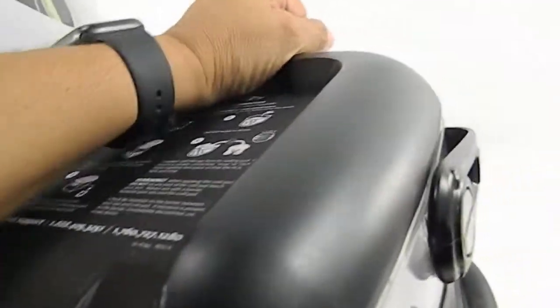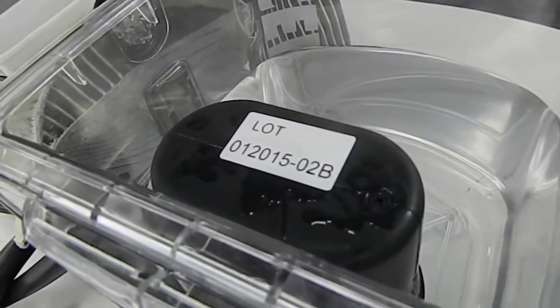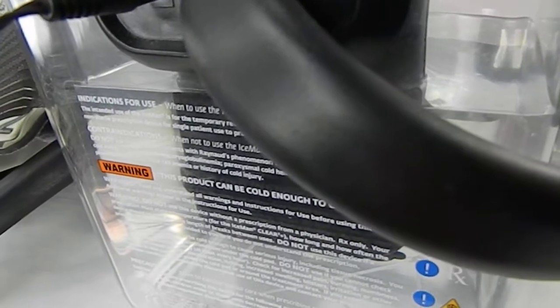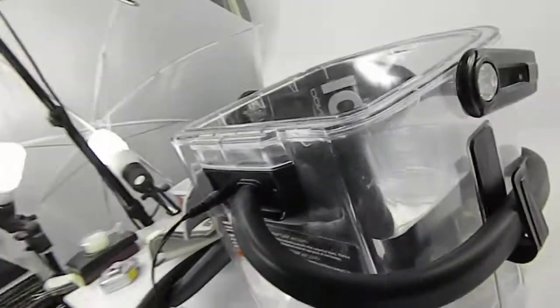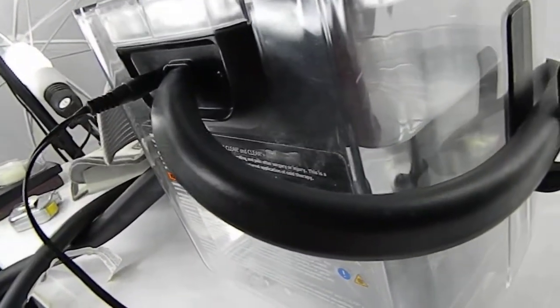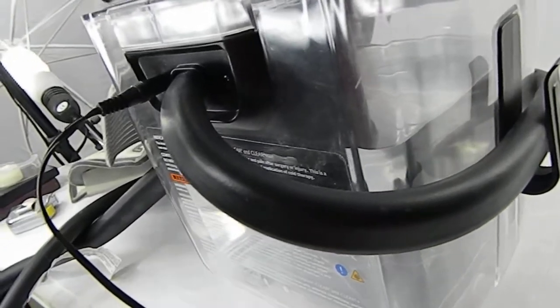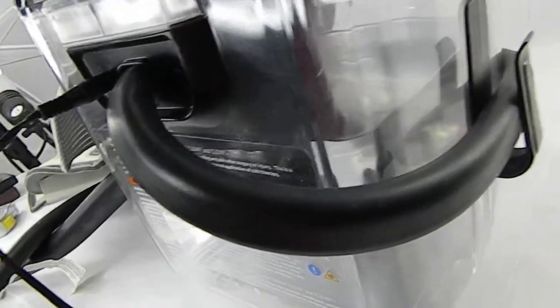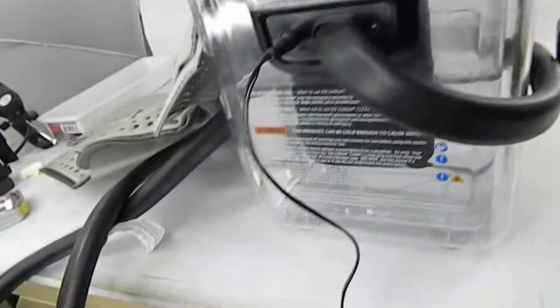I'll take off the lid. I put water in there, but it's just not pumping. So I don't know what's wrong with it. I bought it to resell it and it doesn't work.